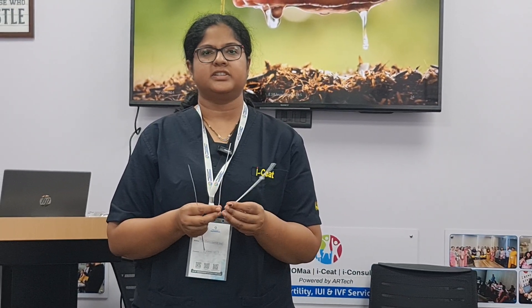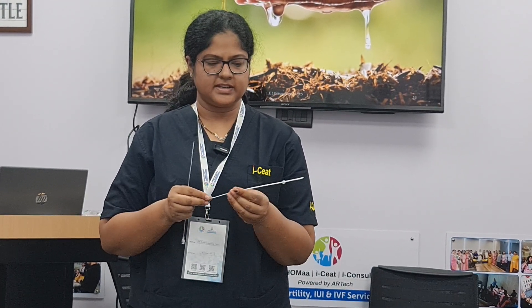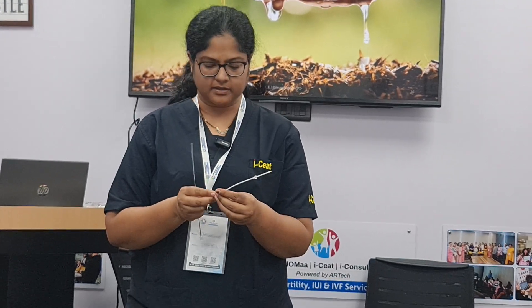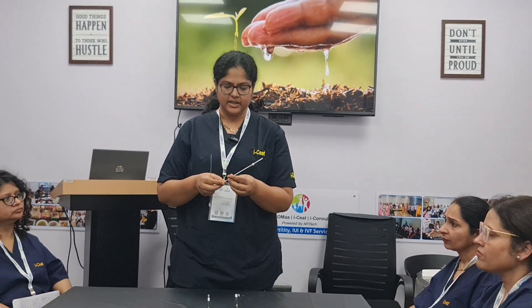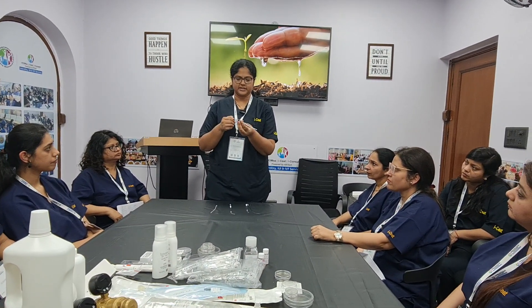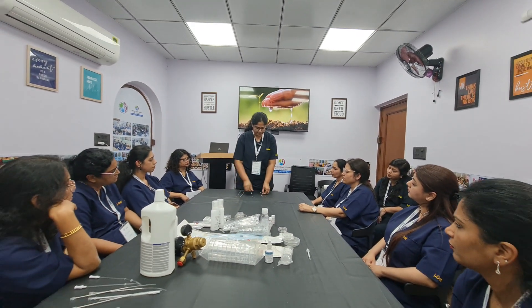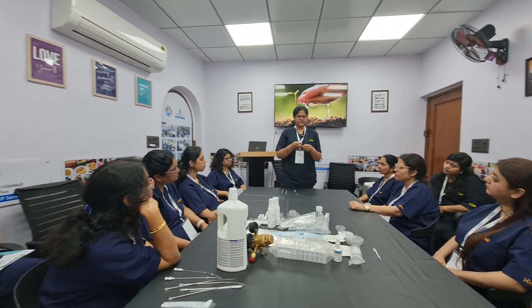Coming to the three-piece catheter, this has a stilet and it is used mainly in endometrial cavities which are difficult to maneuver. First we insert the stilet and go inside the uterine cavity. After that we remove the stilet, the inner catheter is inserted, and the rest of the procedure is the same.